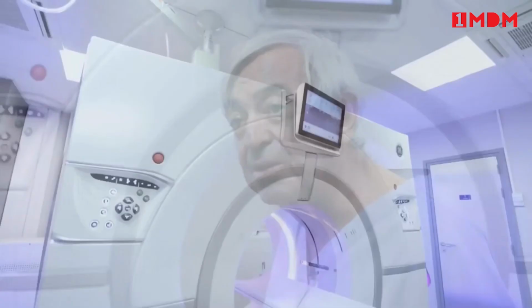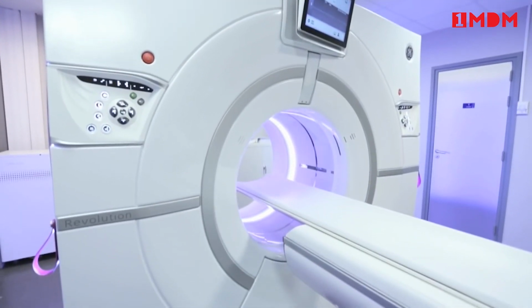Revolution CT also opens the door to new CT applications such as 4D dynamic imaging of coronary arteries and myocardial perfusion imaging. The first results are really promising, combining anatomical and functional information in a single exam. Improved robustness, better image quality, and lower dose are the main benefits of this revolutionary system. Cardiac CT becomes more and more the first-line exam in the evaluation of ischemic cardiopathy.